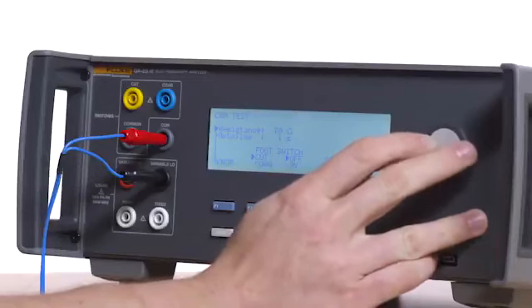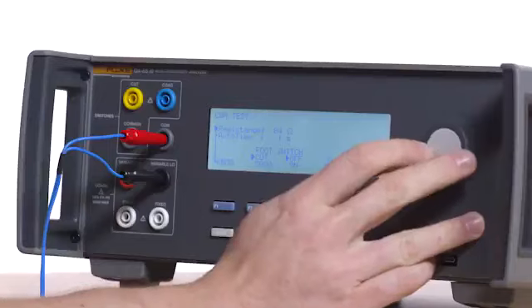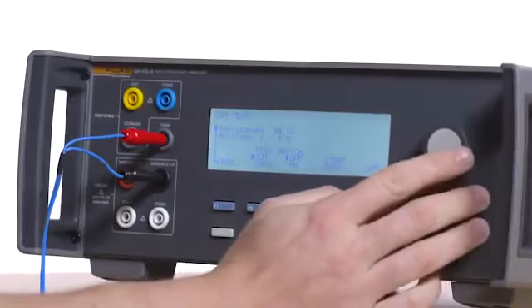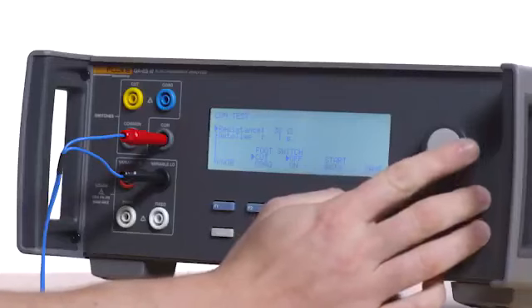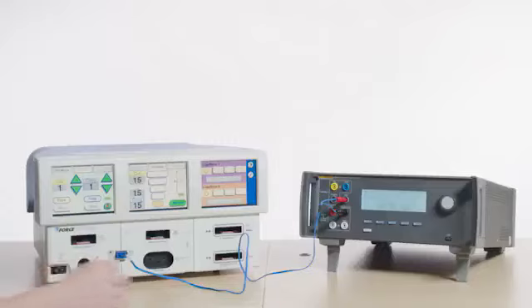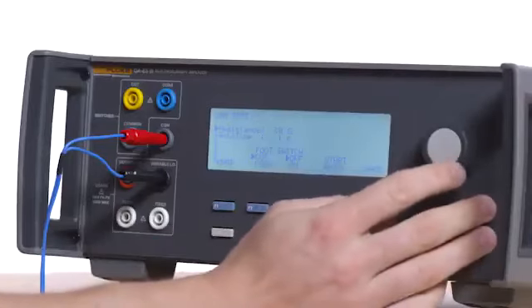Decrease the resistance to 30 ohms. Verify the REM indicator is green. Repeat for 10 ohms.